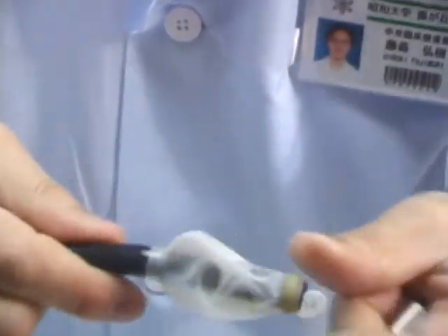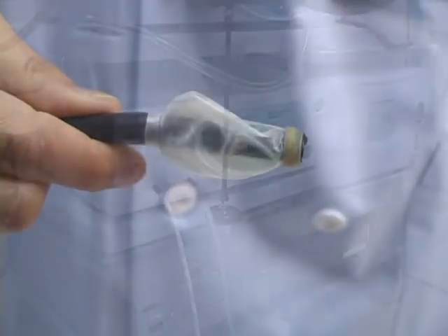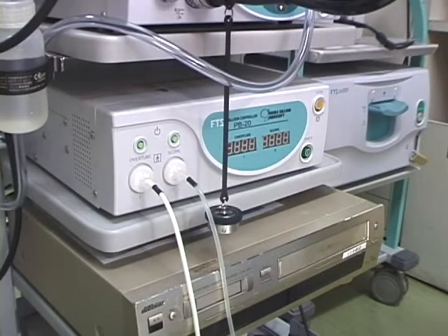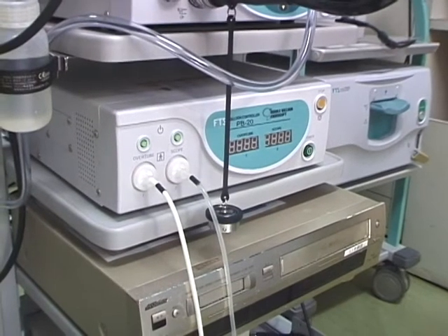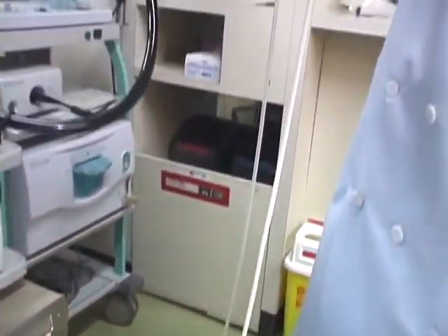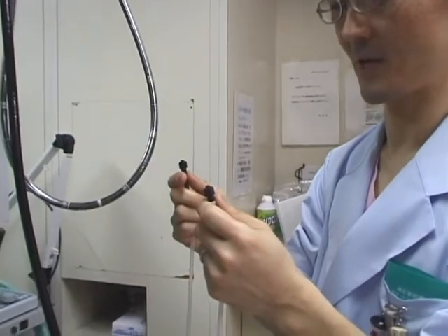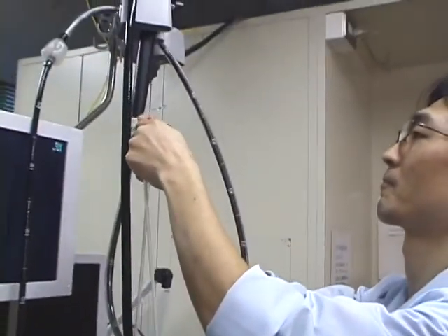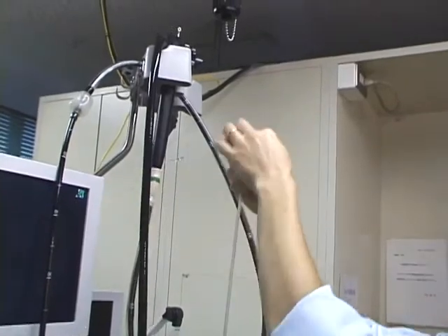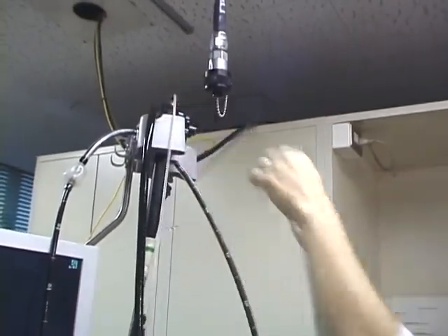Using the same procedure, mount the other fixation rubber. Finally, attach the scope balloon and air supply tube of the overtube. If a mistake is made in the attachment, the endoscope cannot be inserted, so care is needed to ensure proper attachment. After the balloon is mounted, pour another approximately 10 cc of water into the overtube. The preparation is then complete.